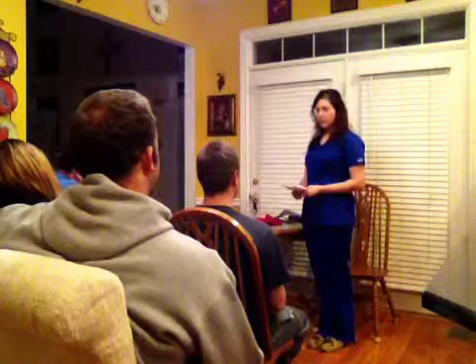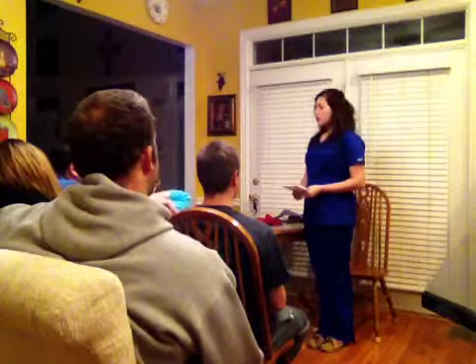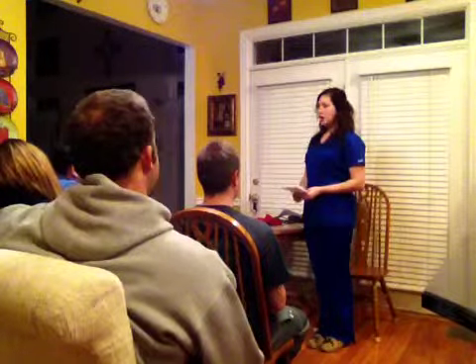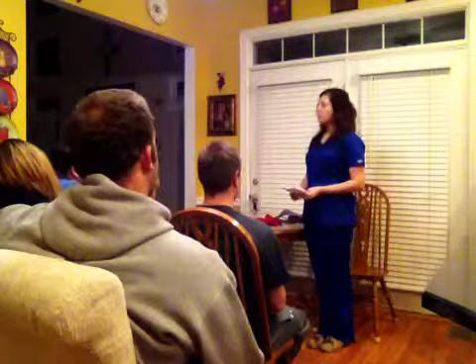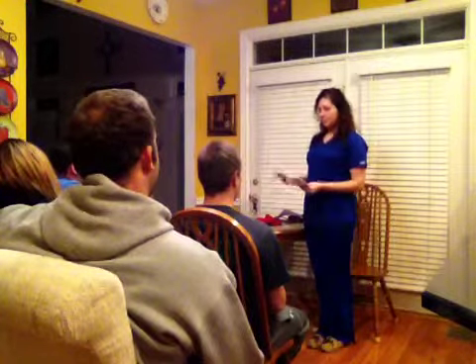Today, we will learn about the equipment that is used, the step-by-step process, what factors can alter your readings, and when to report them to your physician. Knowing how to properly take your own blood pressure can assist you in knowing what is normal for you and help you recognize when something should be reported to the physician.